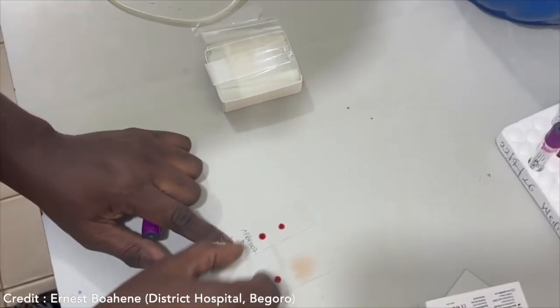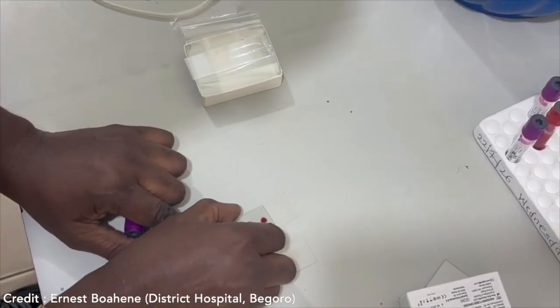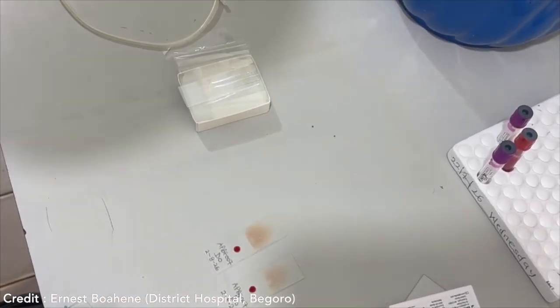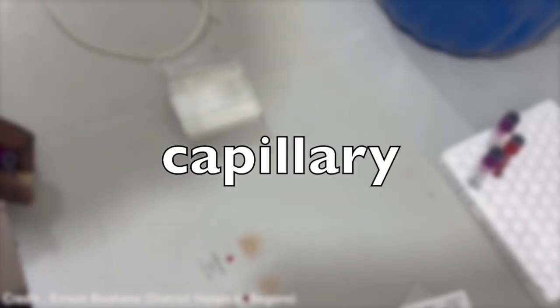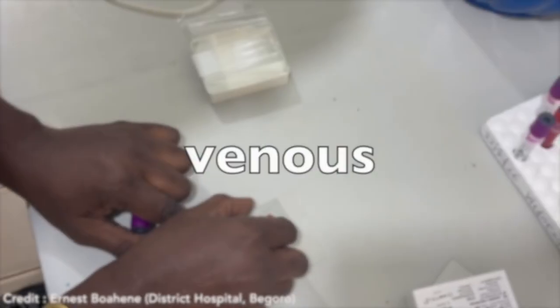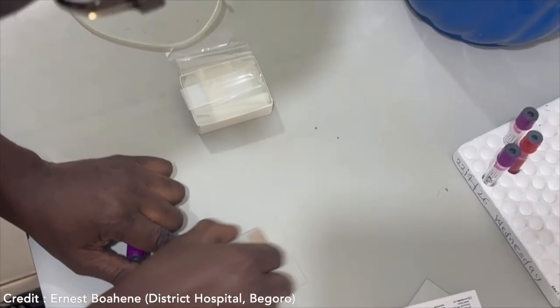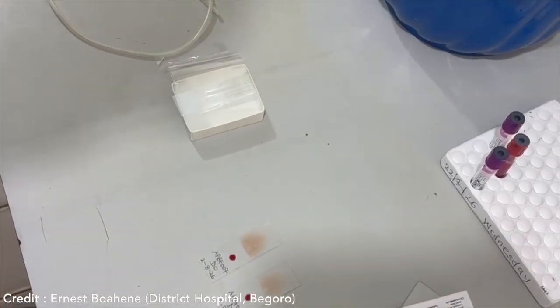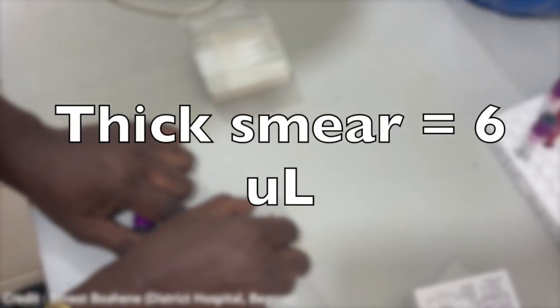So we've talked about preparing these smears. How do you actually do it? You can do it in two ways. You can collect the blood via capillaries, so this is your finger prick, or you can do the venous blood collection where you actually put a needle into the vein and collect the blood. And so if you're preparing a thick film smear, you're going to use 6 microliters of the blood.